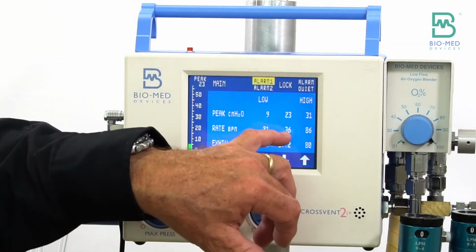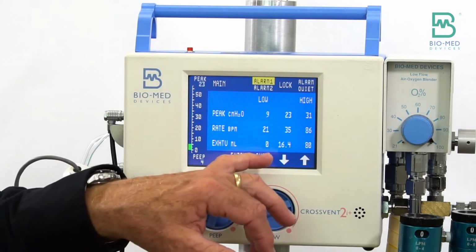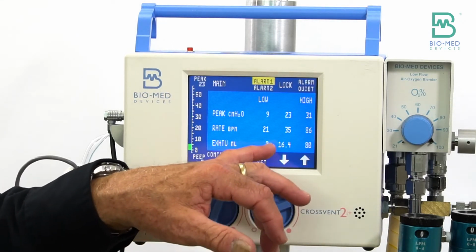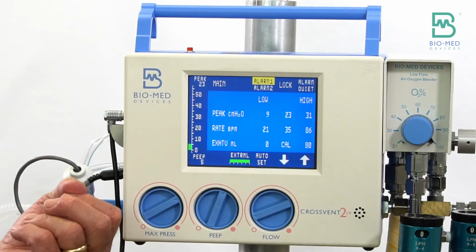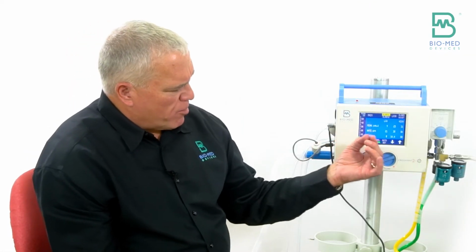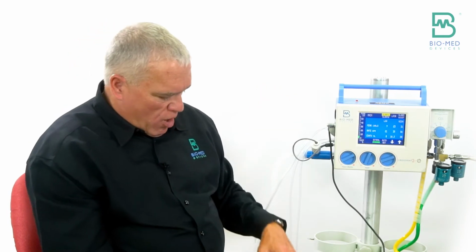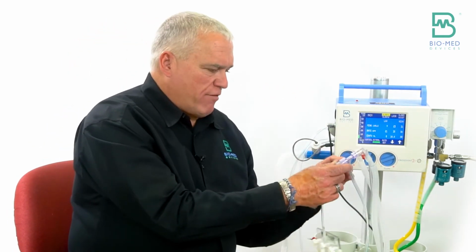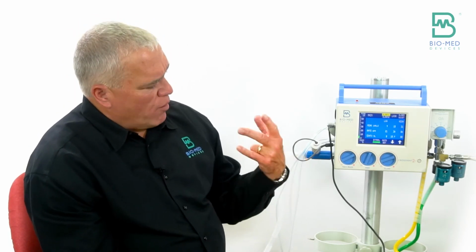One other thing to note, that cal that came up, what that is: we used to only be able to go down and read as low as about 5 mLs for tidal volumes. That's because we had a purge that went down the flow sensor line every single breath. It was just a small purge flow, but because that flow was happening right when we're trying to read this volume, we weren't able to differentiate really low volumes.